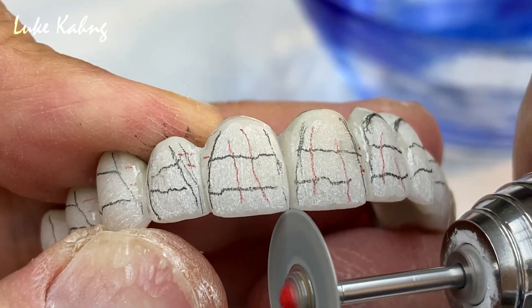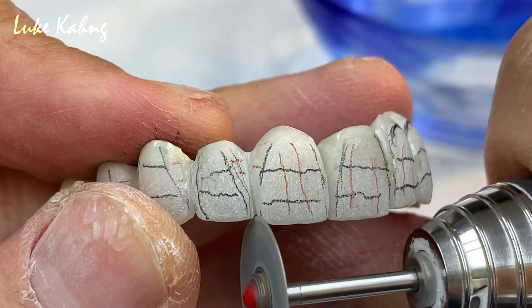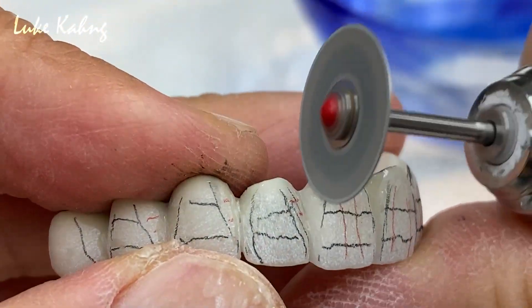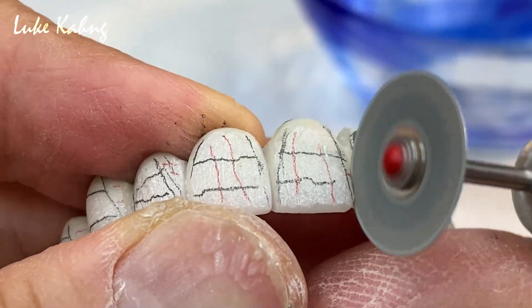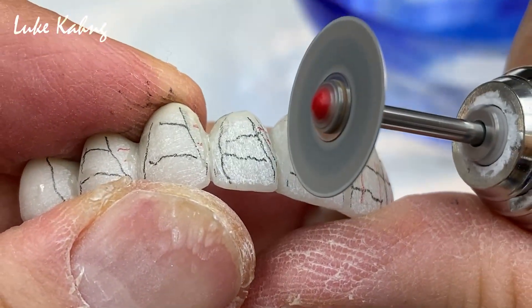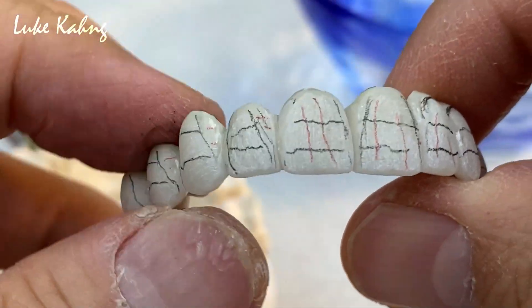I'm going to make it a slightly girly-looking — that's why it's slightly rounded. On the paper, remember that's why I made a good design to be wider — otherwise it's not like this. It's a contour.